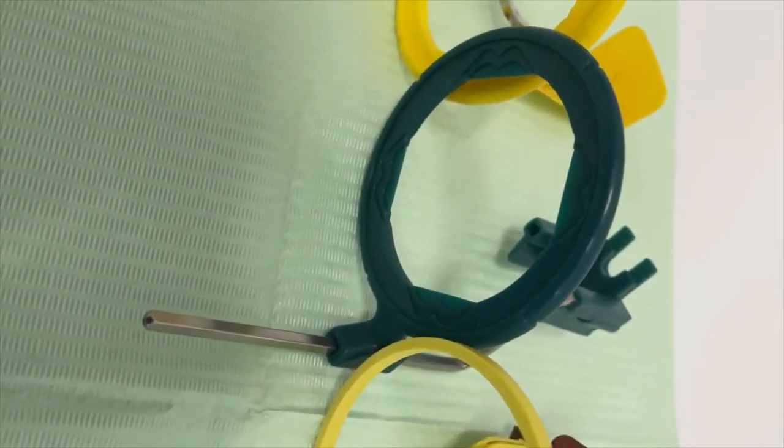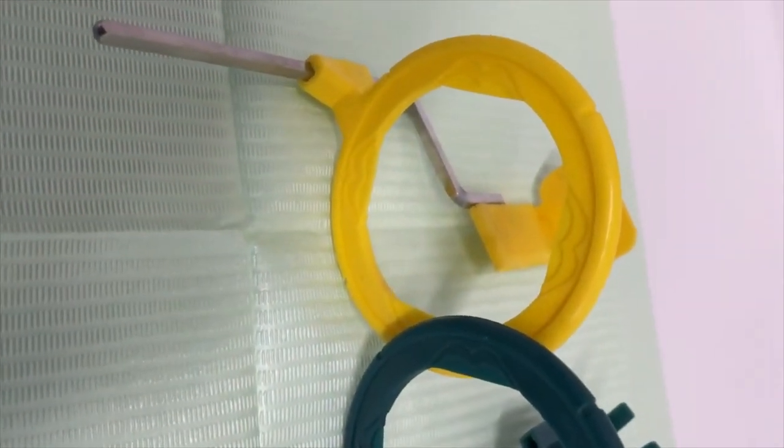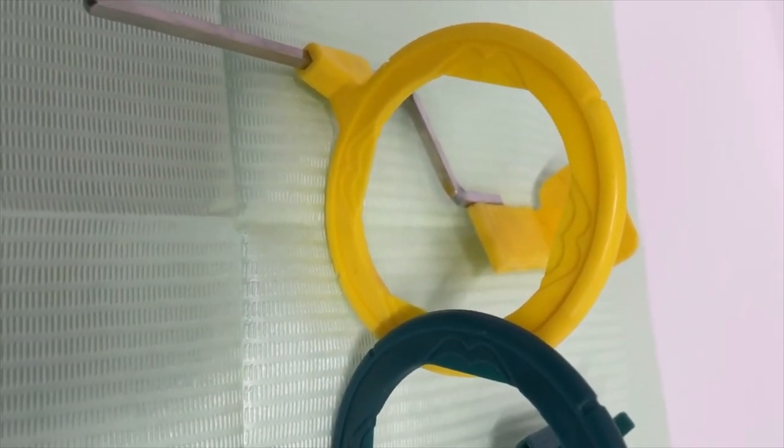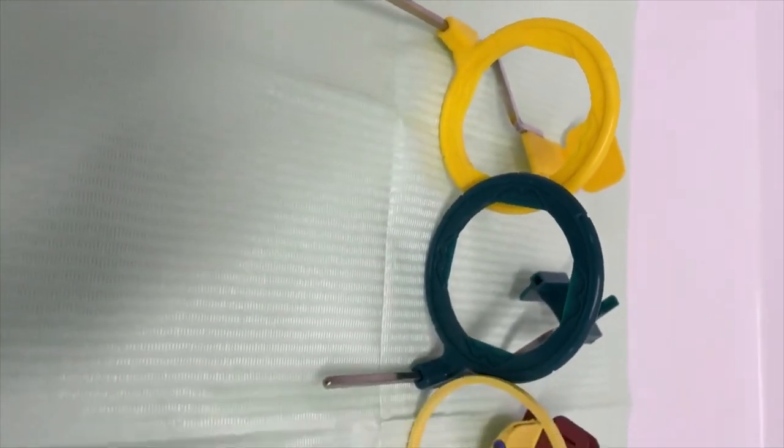And the green one is for root canal treatment, and this yellow one is also for posterior periapical holder.